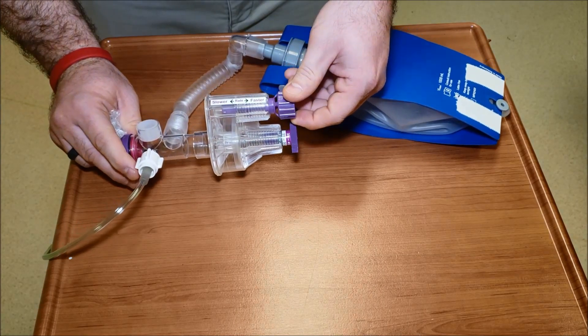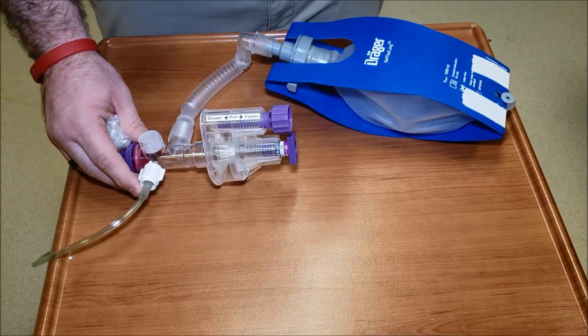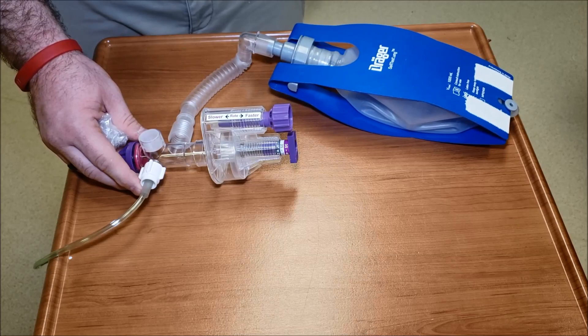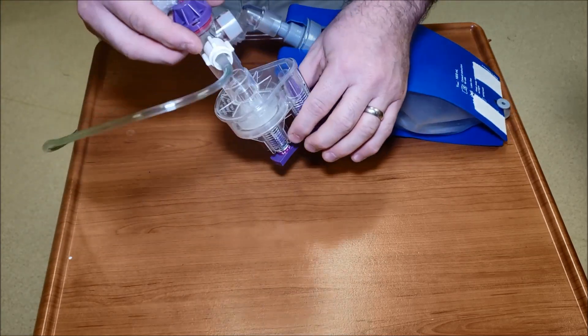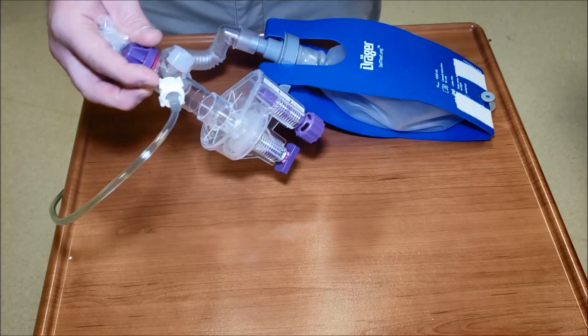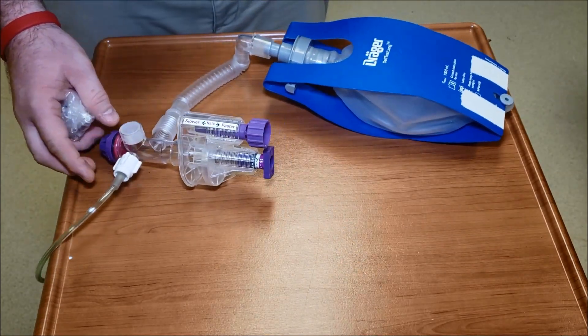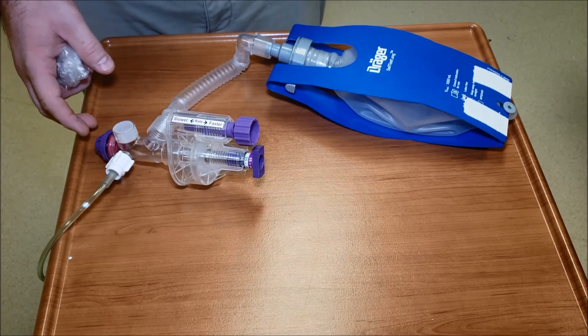There's a good rate right there. This is something that's really good before you put this on a patient - you want to test to make sure it's cycling because that diaphragm inside of here can get sticky and it won't cycle. You don't just want it delivering that large pressure.